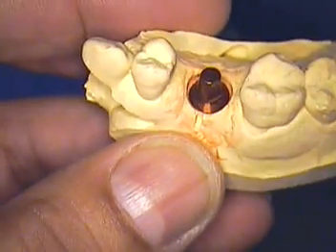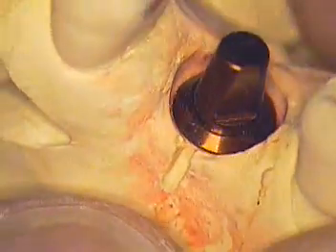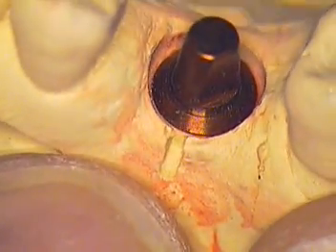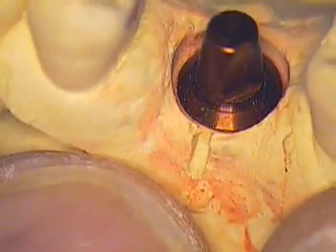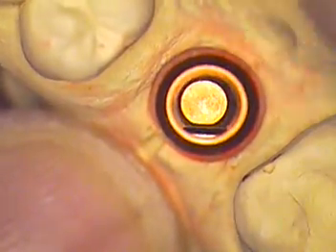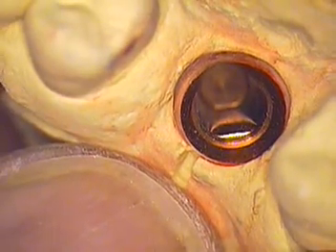Getting back to the bone level idea, as it compares now to Straumann's regular solid abutment — the solid abutment doesn't really give an opportunity for the dentist to make a crown with margins that are more toward the crest of the tissue, making it difficult to clean the cement after we place the crown. In my other video segment on the cementation of this particular crown, we show you the exact technique and how to do it without trapping cement below the tissue.